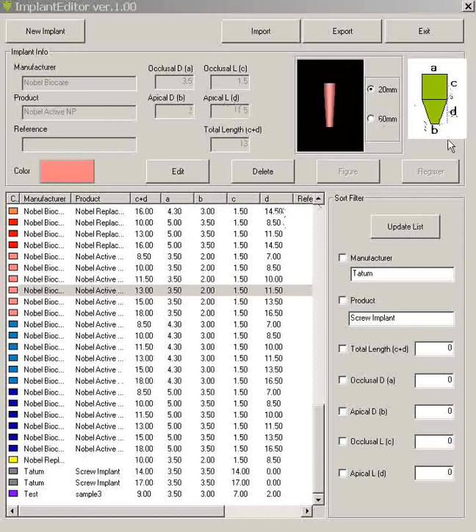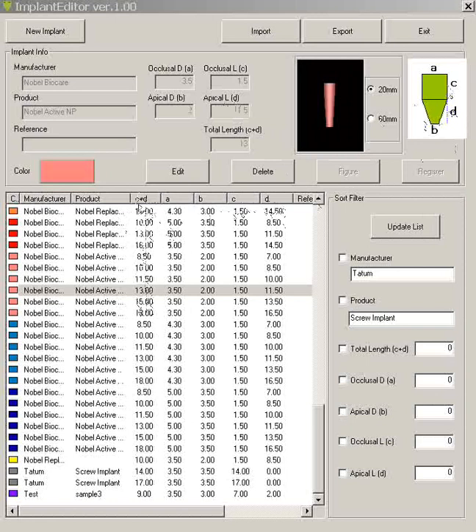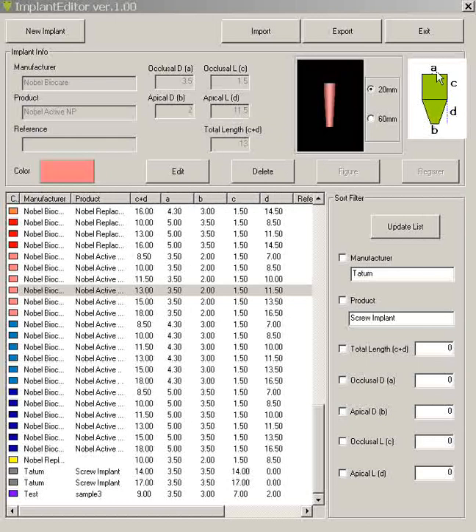Now C and D represents the total length. So we put this in the first column which makes sense. So this is the total length and then we have our other particular diameter. So if you have a tapered implant like you've got here then of course your occlusal diameter will be greater than your apical diameter. So that just makes sense.